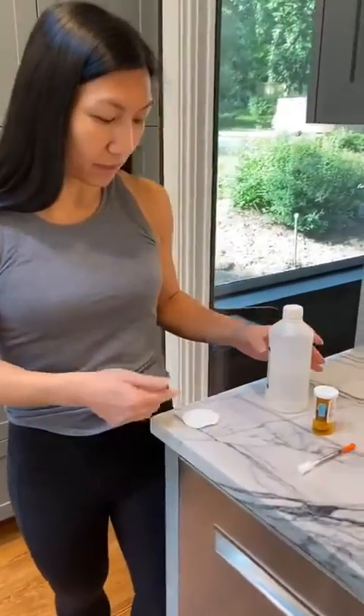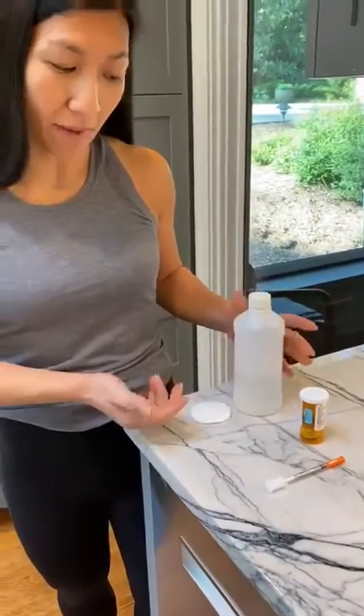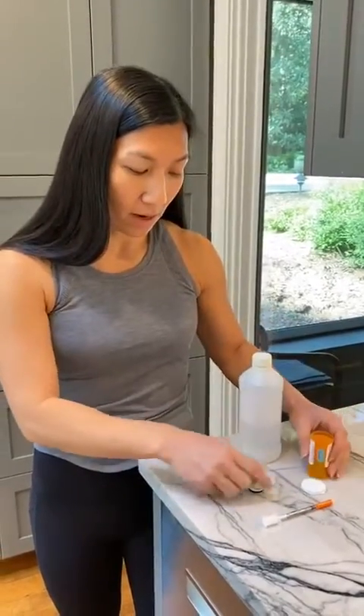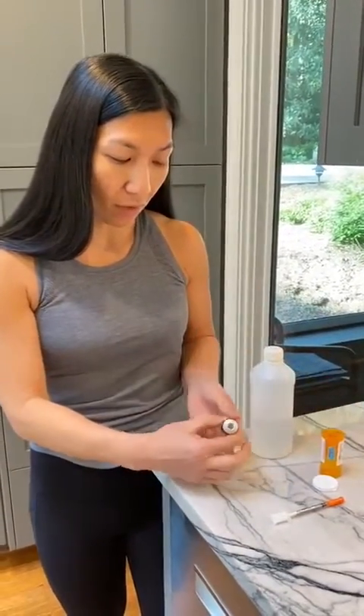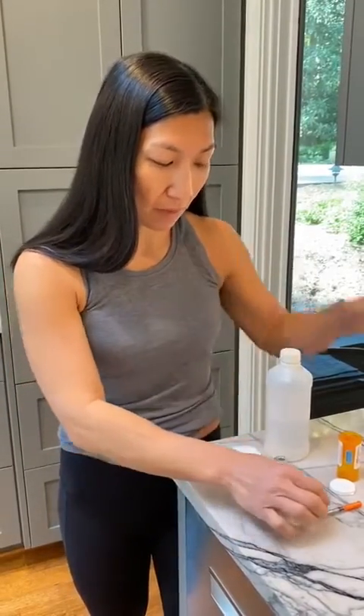What we need for setup is going to be your alcohol. I have alcohol and a swab — if you have alcohol pads, that's great. I have the medication that I already took out, and when you first start with the first vial, there's actually a cap on it. You'll have to pop off that cap — I already popped off that cap.